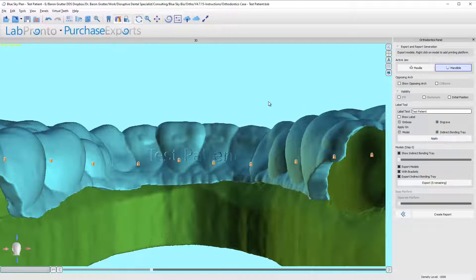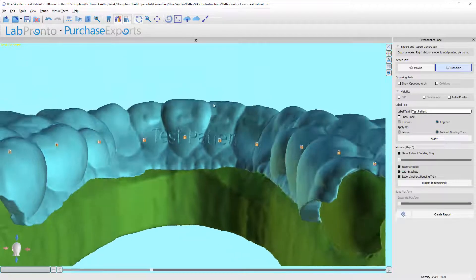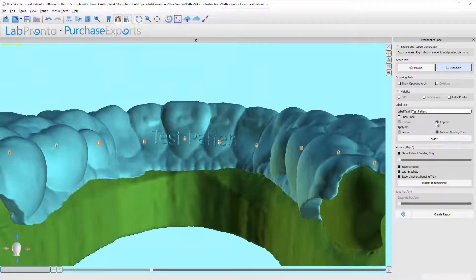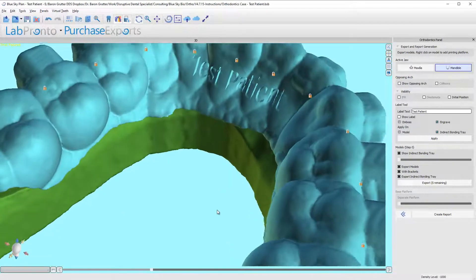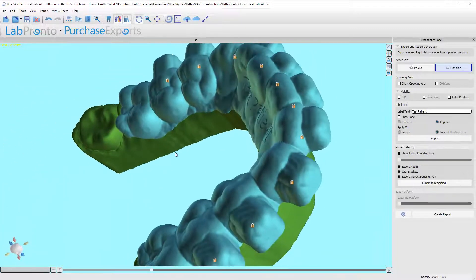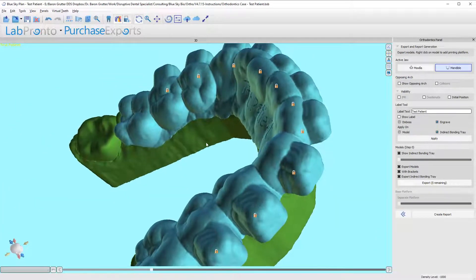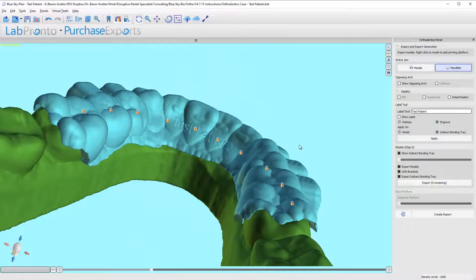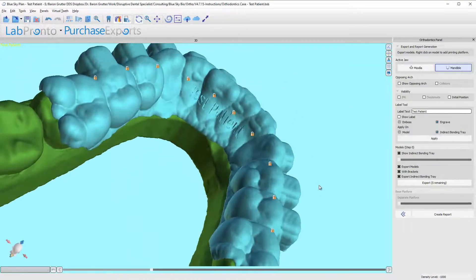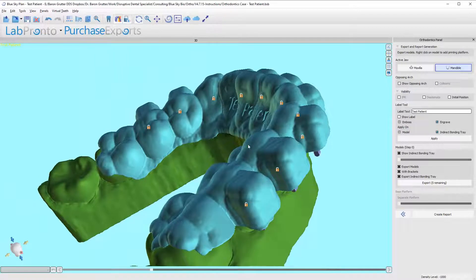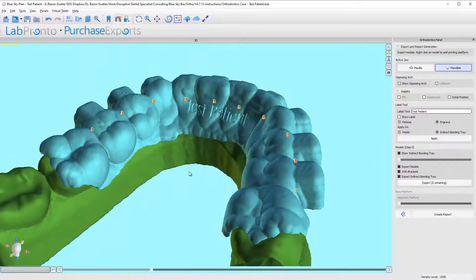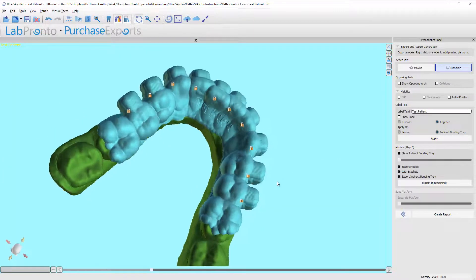And it's all done. Notice I also use the engrave as opposed to the emboss. That's a preference—you can have it emboss where it sticks out. I like to have it engraved in there. Again, that's just something I do with my surgical guides, with my dental and ortho models and whatnot.